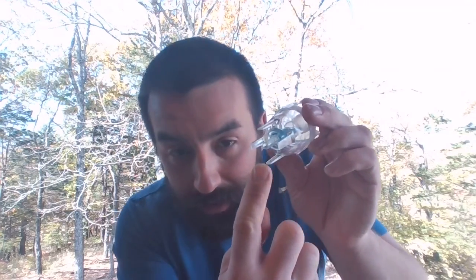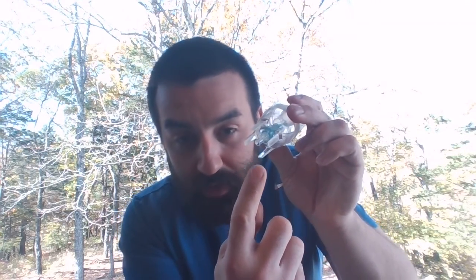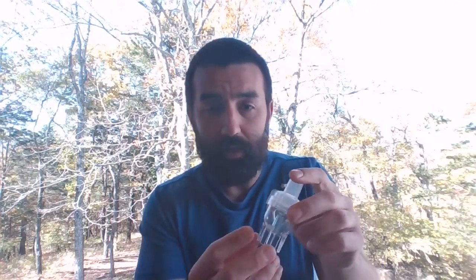So one thing I want to point out is all of these jet nebs are going to require some sort of a compressed gas. It doesn't have to be oxygen. We use oxygen a lot of times at the hospital, but we're not giving these treatments in order to improve somebody's oxygenation. It's to reverse some sort of potentially or hopefully reversible airway obstruction, so bronchospasm, something along those lines. Sometimes we're depositing upper airway stuff, like racemic epi or something like that. But we need a compressed gas source.